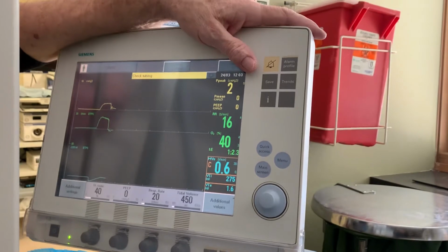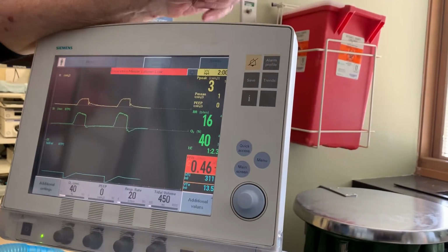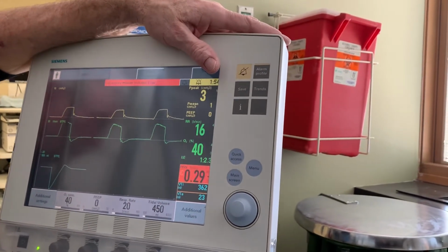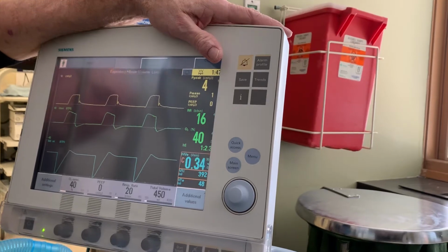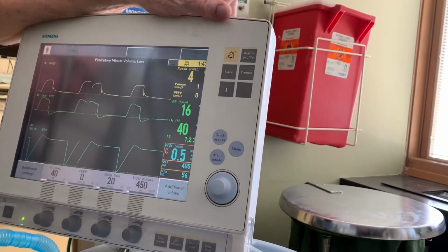Usually intermittent alarms are related to something regarding the patient, right? And that usually is a high pressure alarm. It's usually their reaction to the ventilator delivering a breath when they have secretions, and they may need secretions cleared from their airway. That's your basic ventilation, as simply as it should be said.